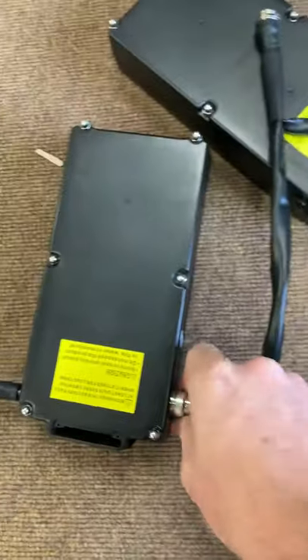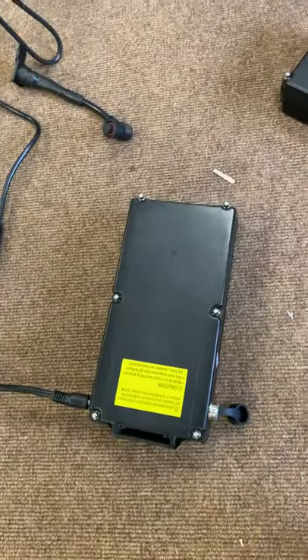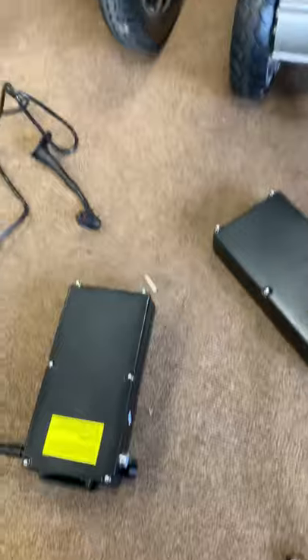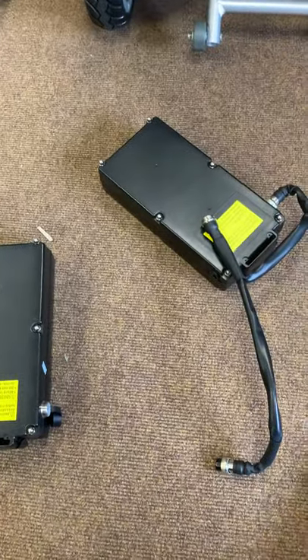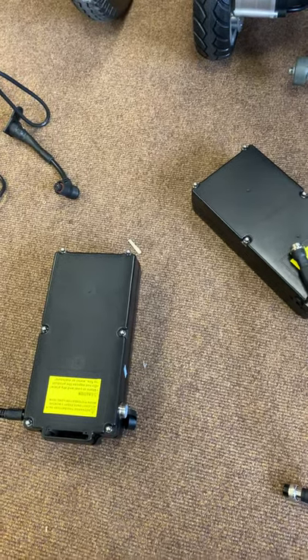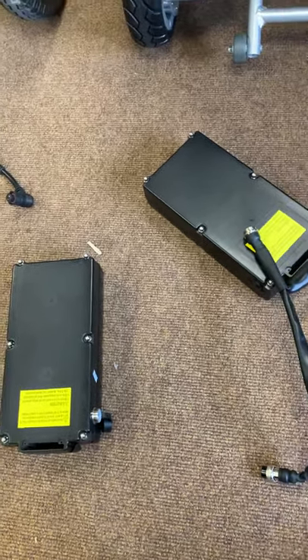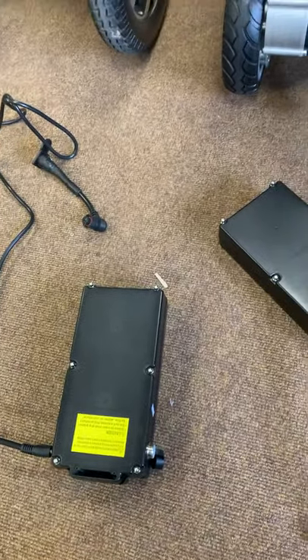Alternatively, you can undo the two batteries and charge one at a time, but as long as they're linked you're charging both. That's how you charge both the Liftec Smart Chair X batteries and the Compact batteries. To keep it simple — most people would just charge directly through the joystick, put it on before you go to bed and take it off first thing in the morning, and you've always got a full charge for your chair.